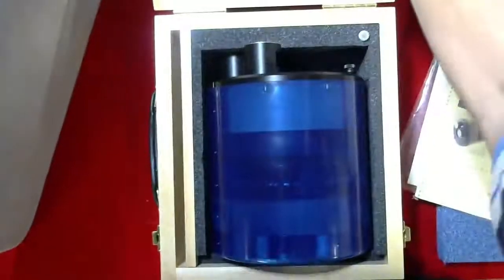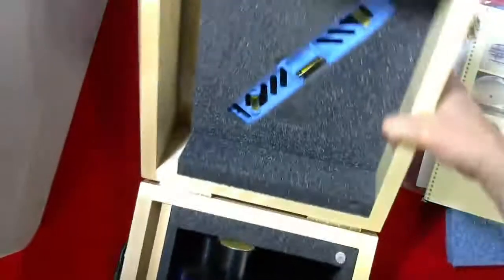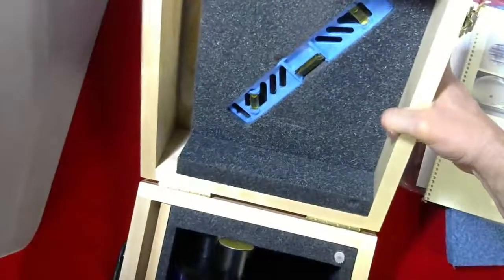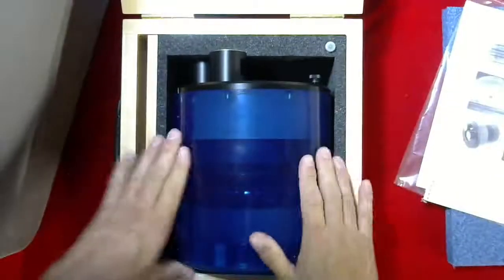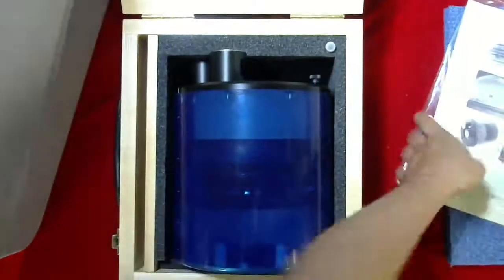It also comes at the top of the case, which you probably can't see. It comes with a level. Let me just move it over here. You can see there is the level so that you get consistent positioning every time you're doing your measurements. Again, another quick video for you.